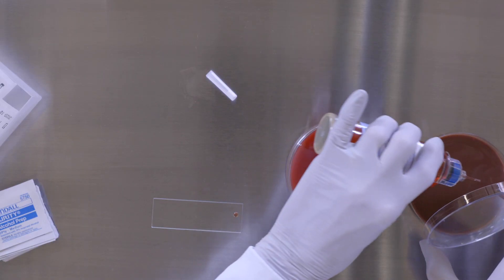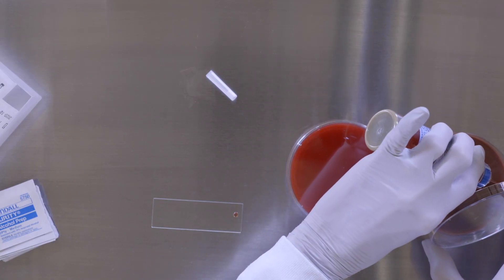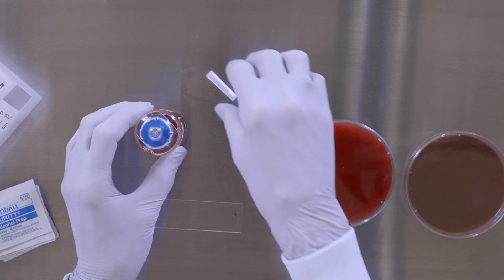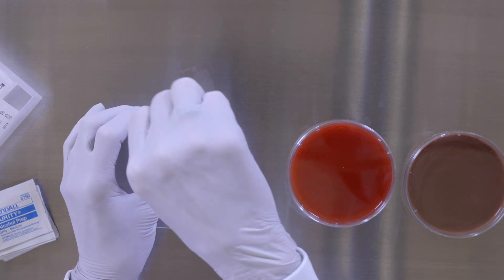After the required number of sample drops from the bottle have been dispensed, turn the bottle upright and replace the protective cap over the dispensing tip.